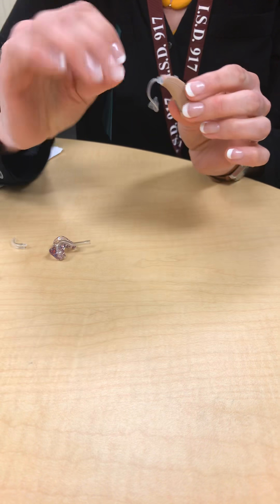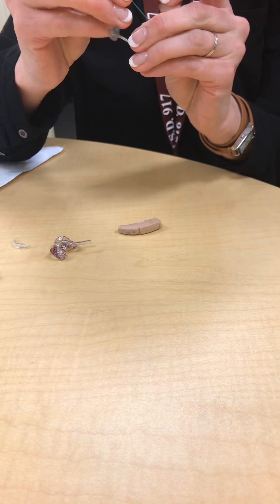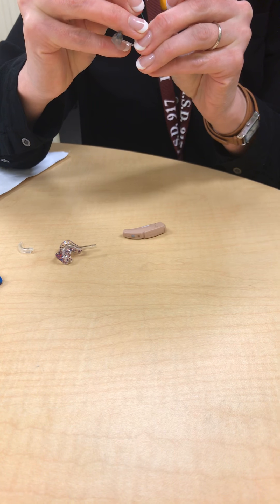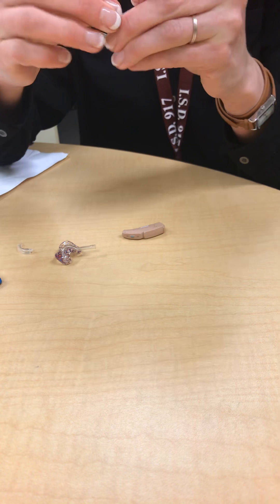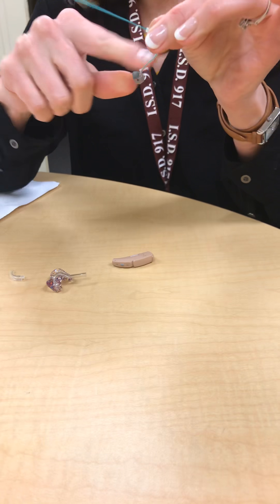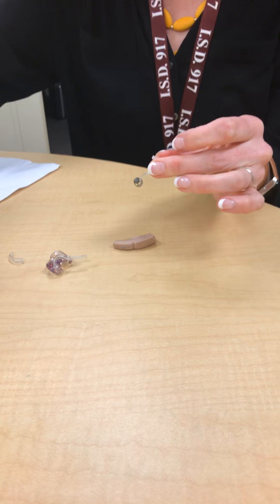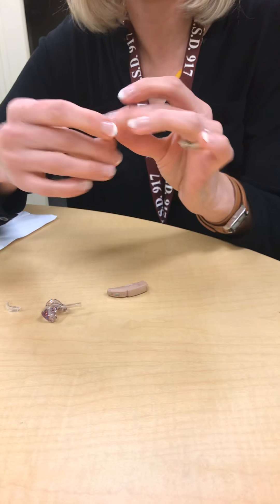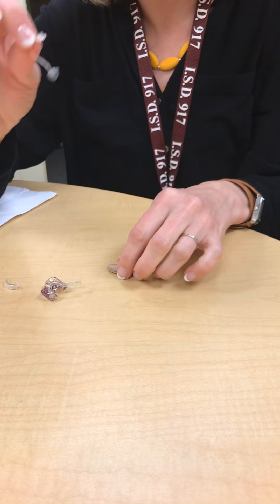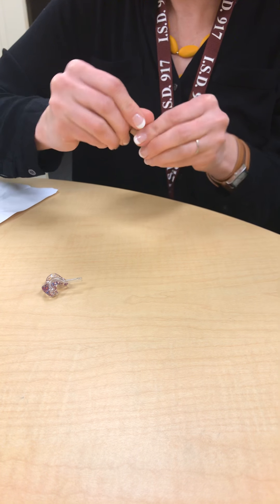For a slim tube it's a little different. You'll probably find in the student's box some of these little slim tube cleaners, which you can try to thread through the slim tube. You can thread it through the slim tube until it comes all the way out the end to clean it. But often even after you thread it, it still doesn't work, so when these are plugged you often simply need to replace them.